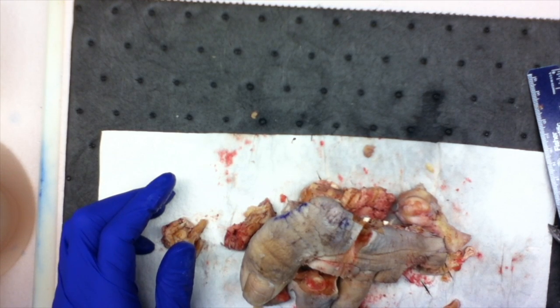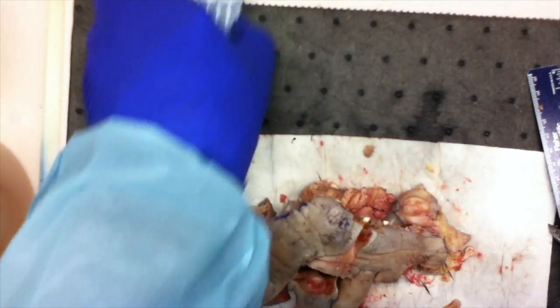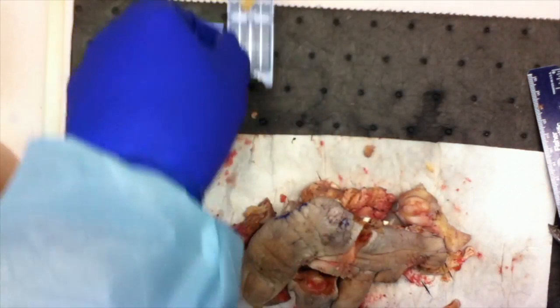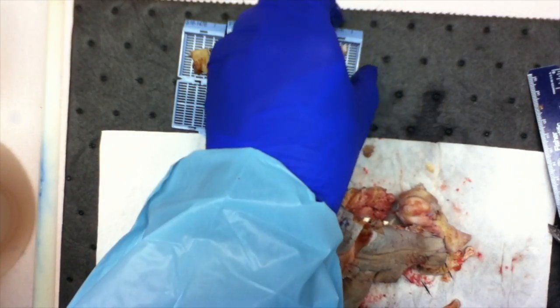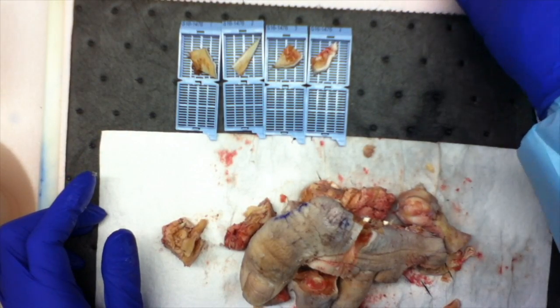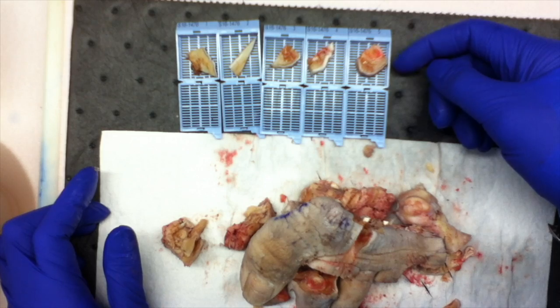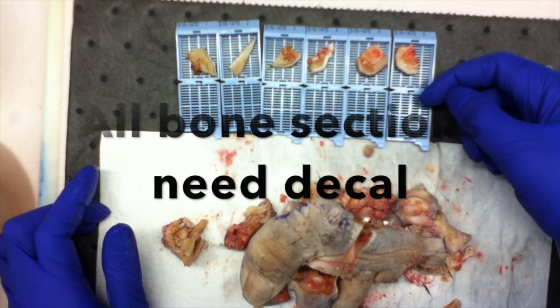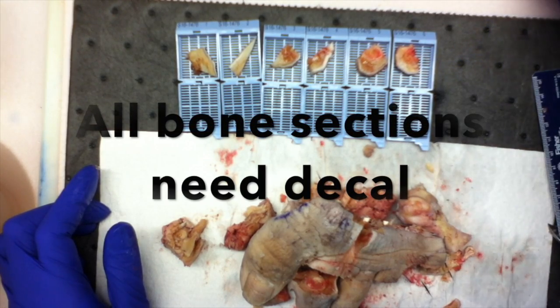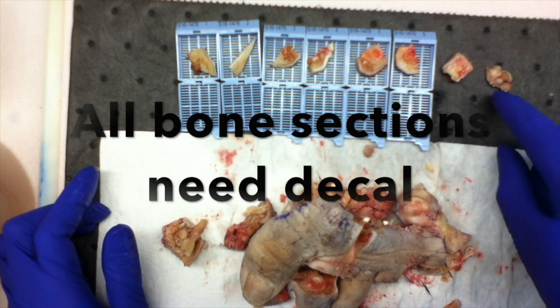So my sections are: skin and soft tissue margin along dorsal surface, skin and soft tissue margin along plantar surface, ulcerative defect along dorsal surface, raised excrescence along plantar surface, second proximal phalange with overlying possible abscess, fourth proximal phalange, third middle phalange, and then second metatarsal bone.